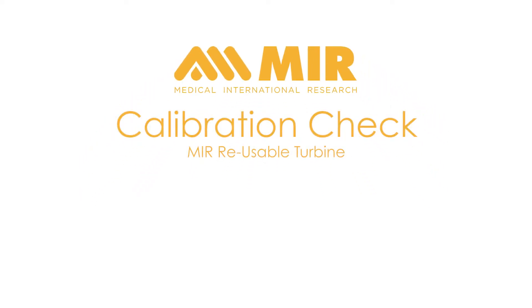This video is designed to show you how to do a calibration check with a reusable turbine, an MIR spirometer, WinSpyro Pro software, and a 3-liter calibration syringe.